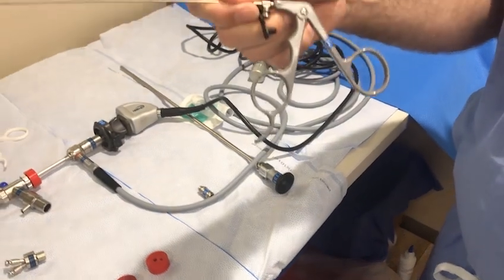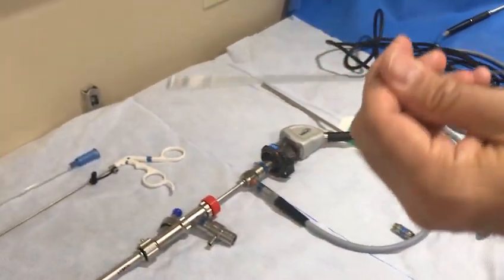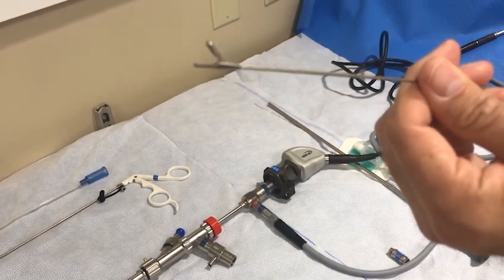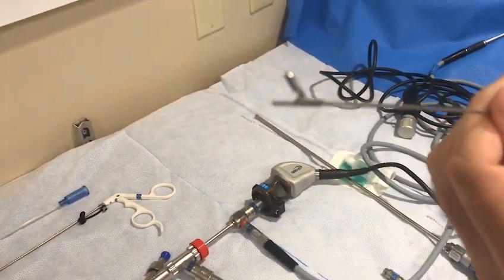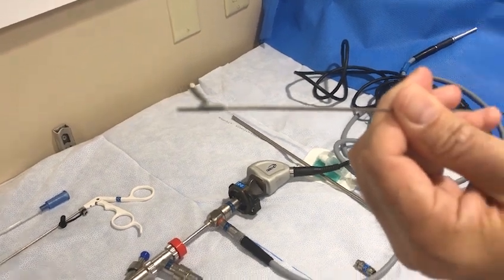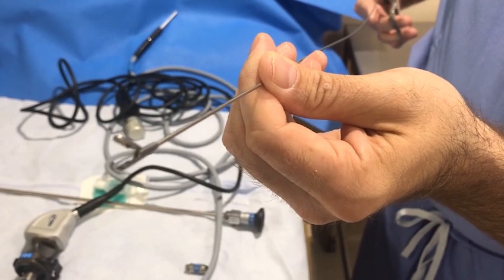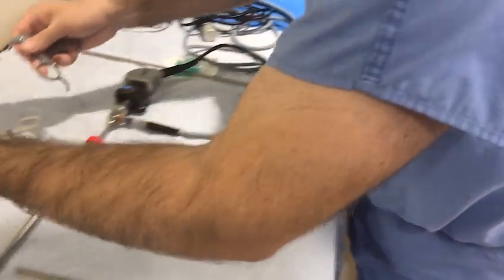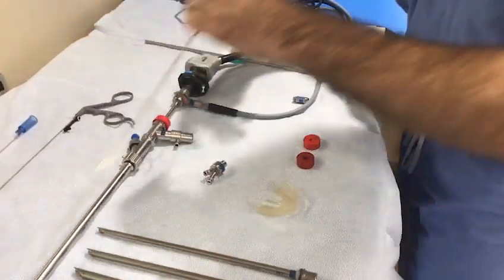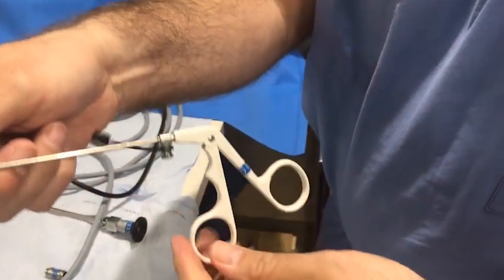The following is a demonstration on insertion of tools into the rigid bronchoscope. This is not exhaustive, but gives a brief overview of how various instruments can be inserted into the scope. This is the gray-handled cup forceps, most commonly used for tissue biopsy. This is the white-handled crocodile forceps, used for stent manipulation.